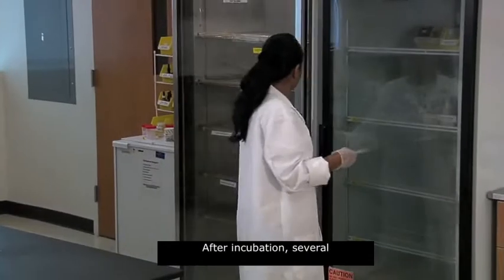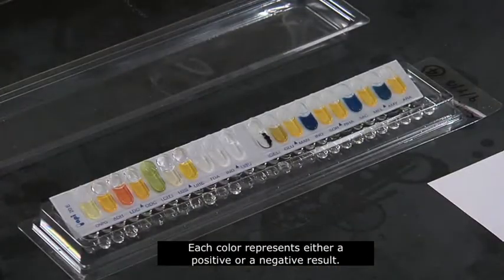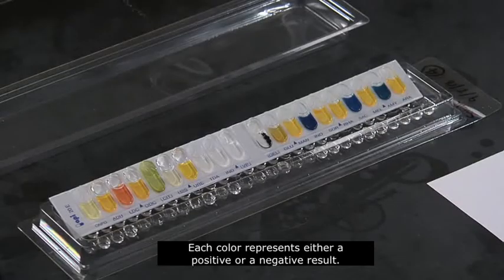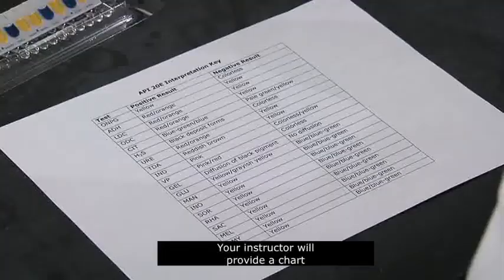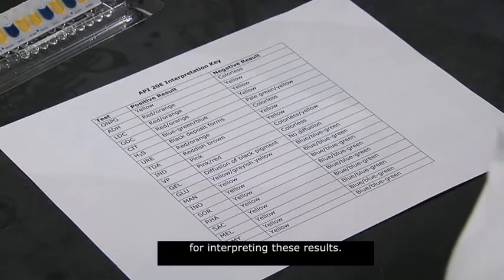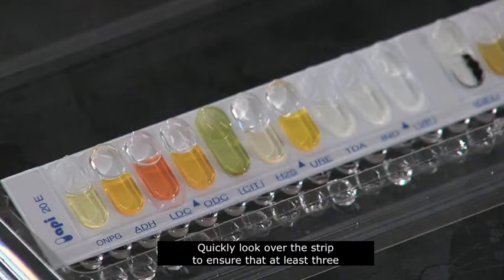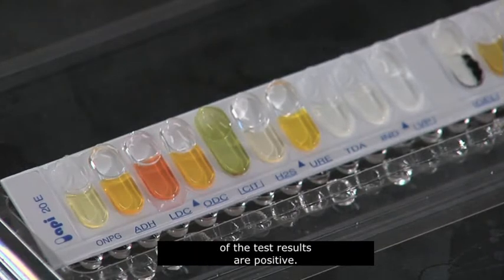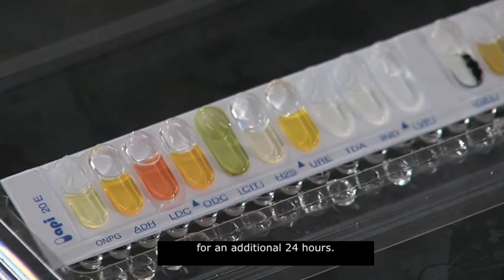After incubation, several of the microtube media have changed color. Each color represents either a positive or a negative result. Your instructor will provide a chart for interpreting these results. Quickly look over the strip to ensure that at least three of the test results are positive. If not, the strip should be incubated for an additional 24 hours.